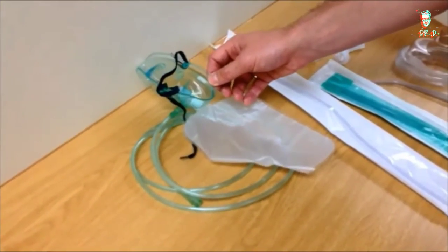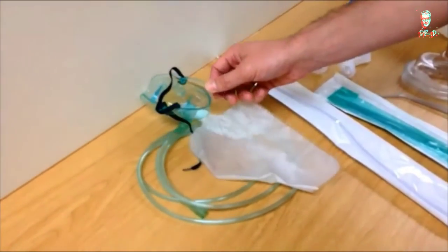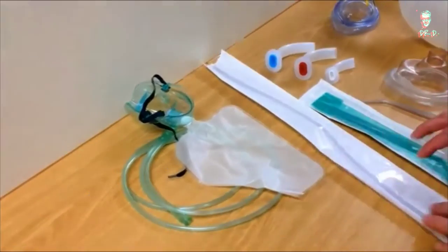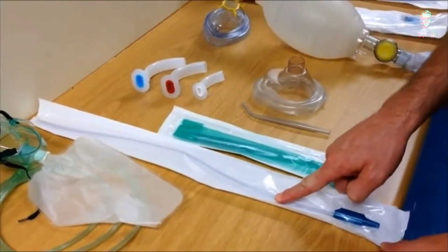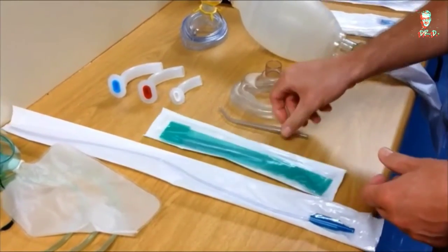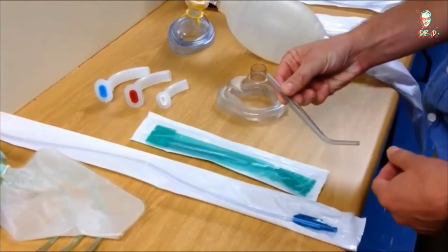You should have a high flow oxygen delivery device or oxygen mask with tubing. You should have a selection of suction devices, in this case soft tip suction and a hard yankauer type suction device. This is what it would look like outside its sheath.